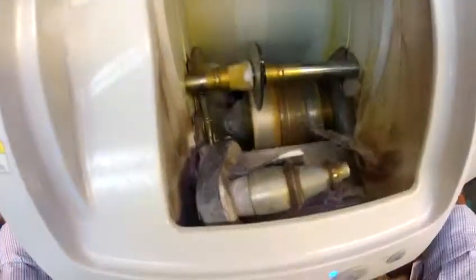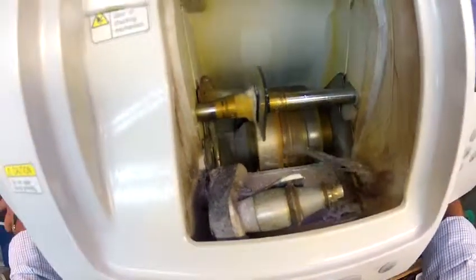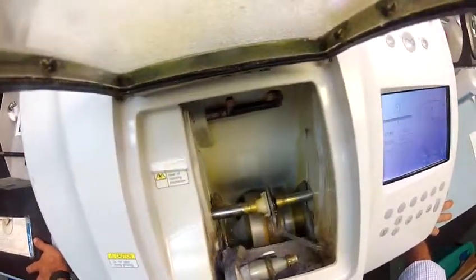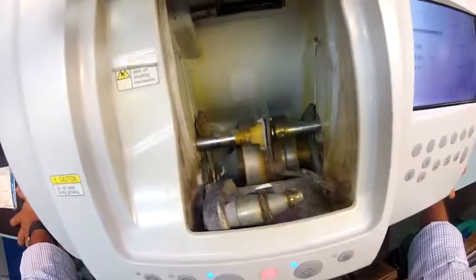If you notice, your lens is still completely flat at the edges just like a nickel — just like a pound, to you. I could take it out and stand it on its edge on the counter. Now it's getting the bevel put on there.